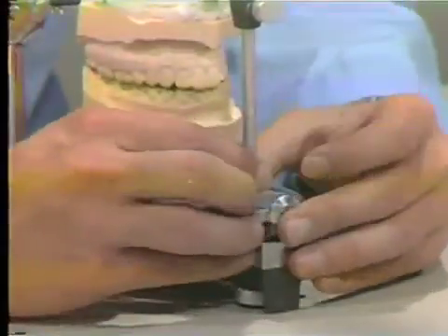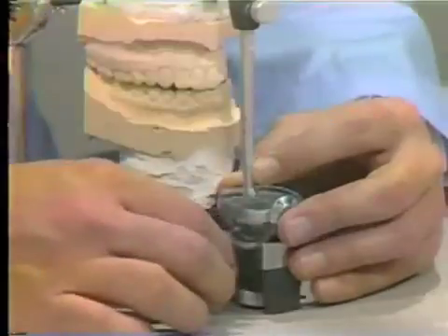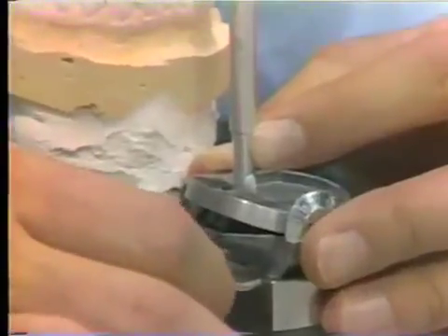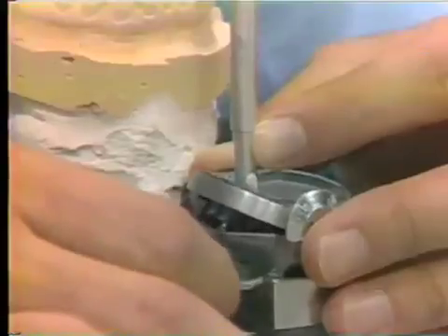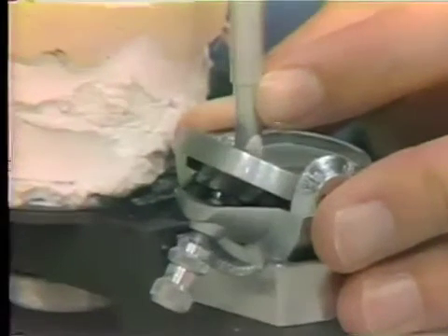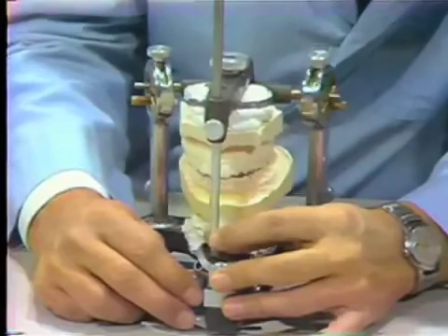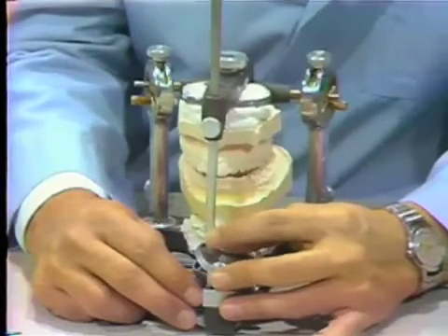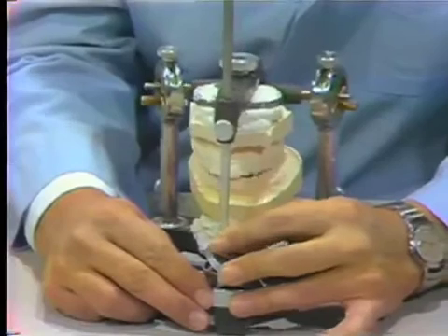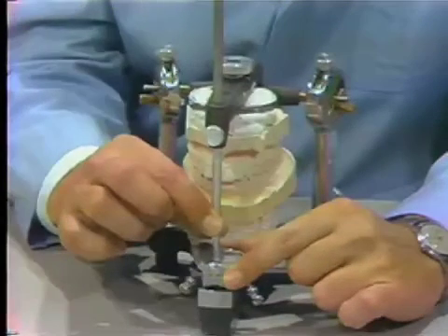If I move the upper member of the articulator to the right — and this does not necessarily mean that the anterior teeth have to provide the guidance; it can be coming from the posterior teeth — the guidance is coming from the stone cast. I can raise this incisal table to touch the incisal pin when the casts are in their end-to-end relationship, and thus make the articulator accept this lateral guidance. I raised it just a little more, and I can move the articulator so that the stone casts are not abrading and the pin is taking the brunt of the guidance.